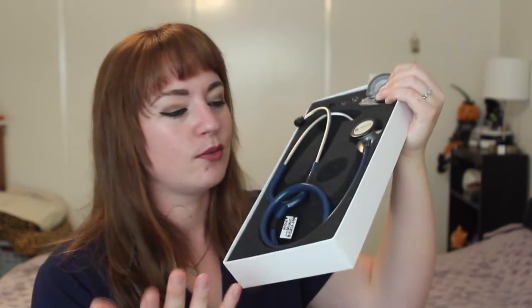This time it was not a purple one — the one they sent before was purple — but they sent me this beautiful navy blue one, and I just love it. It goes great with my scrubs because we wear navy blue at my hospital. This is the one stethoscope I actually have the packaging for. I wanted to keep it in the packaging because I really do like it. They keep it in foam packaging, which is great, and it really showcases how much they care about their stethoscopes. So first impressions are great, especially with packaging like this.